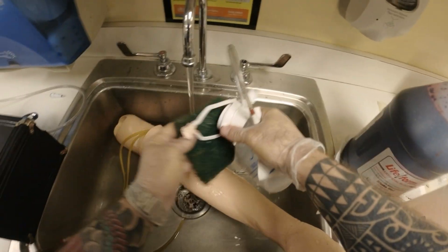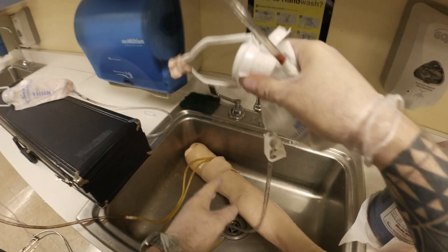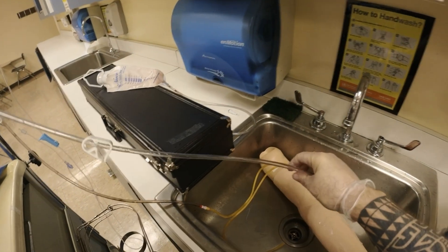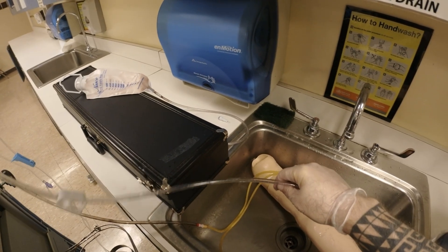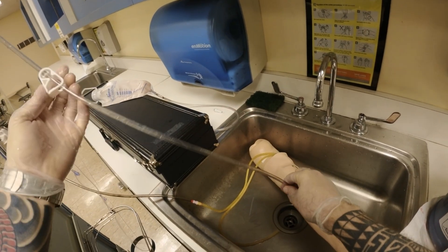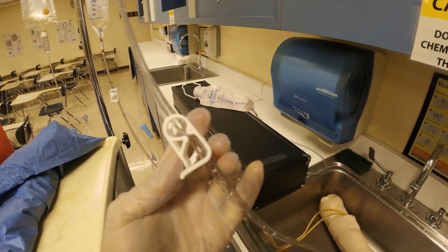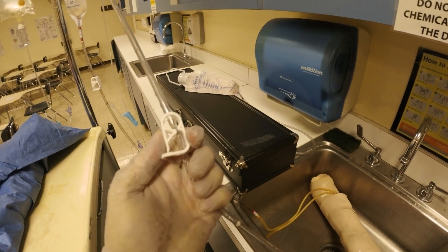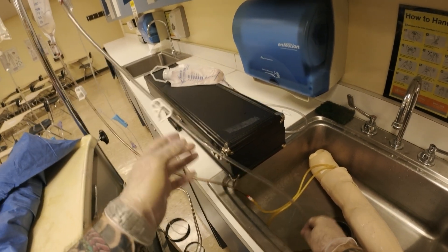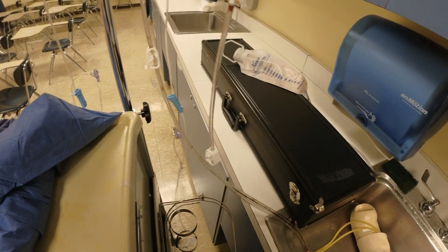Once you clean it you can use a sponge if there's any remaining blood. Once cleaned, this is an important thing: you want to hang them. Do not close any clamps — you want to hang them. Another important thing: you see these clamps, make sure they're open, so they don't cause any kinks. If you leave it closed to dry, it will leave a consistent kink in the tubing. Let it open — you can rotate where you close these clamps.